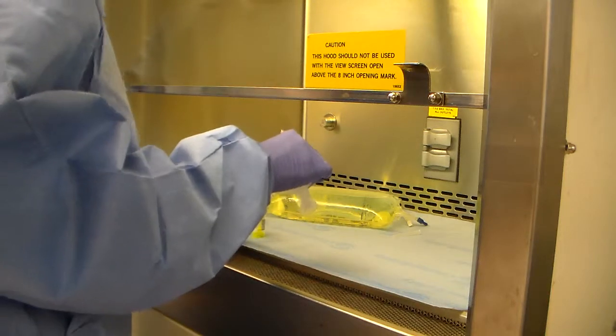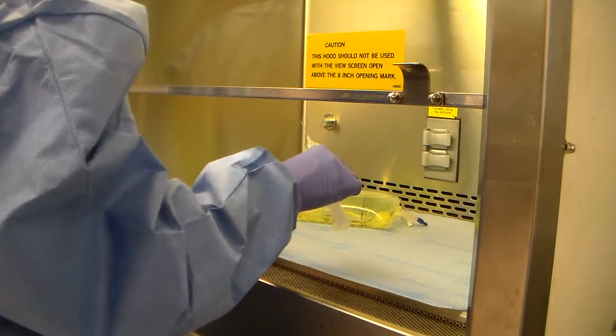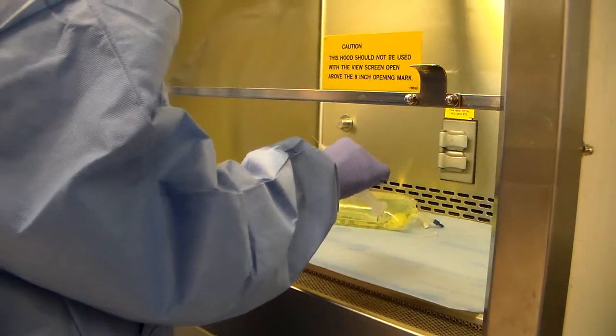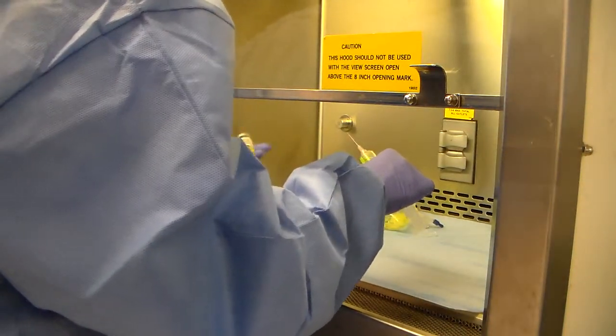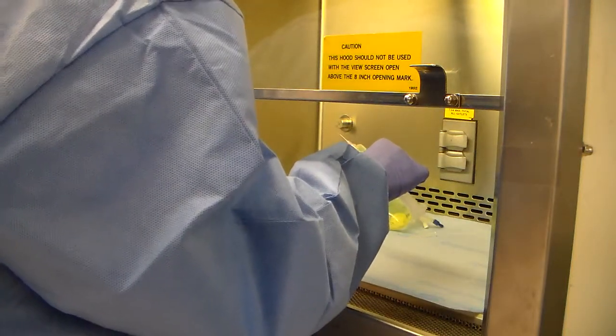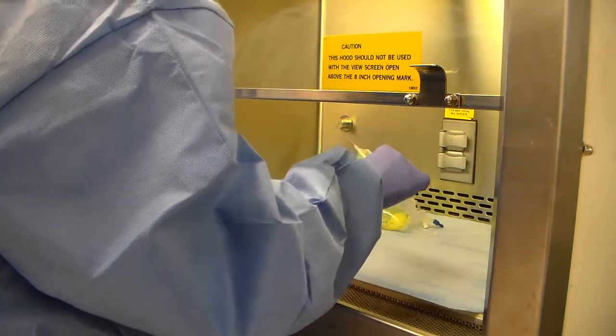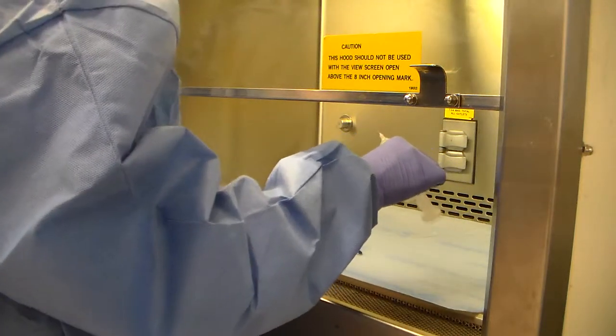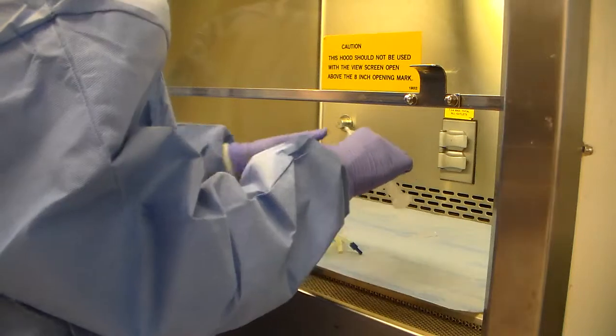Now your pharmacist will take your products from you each time. So like my pharmacist, for example, is going to take the medication from me and dispose of it for me. Because I am not to recap that needle there.